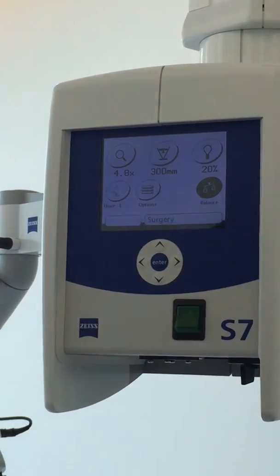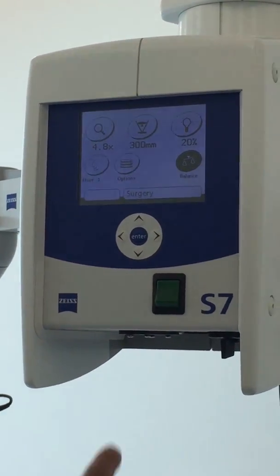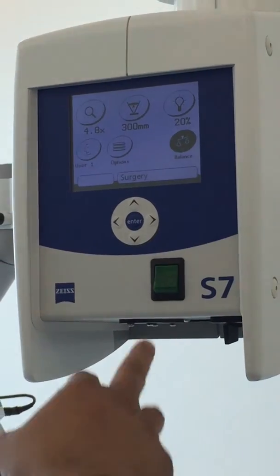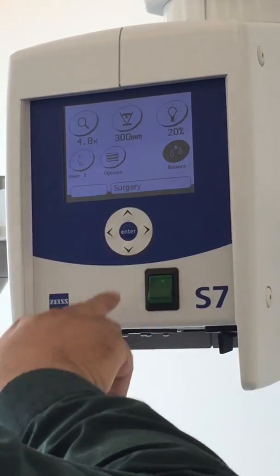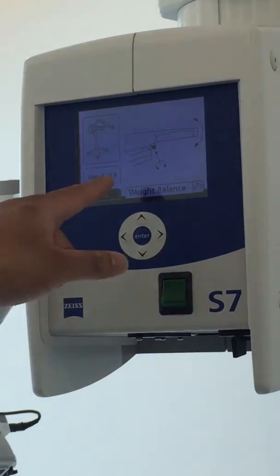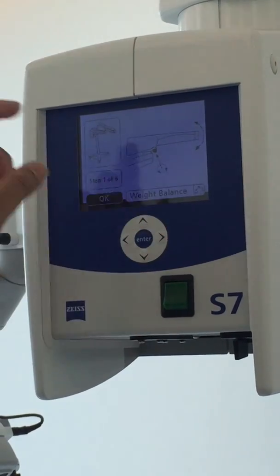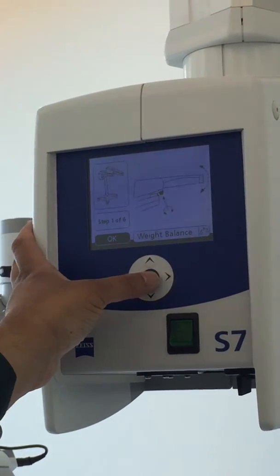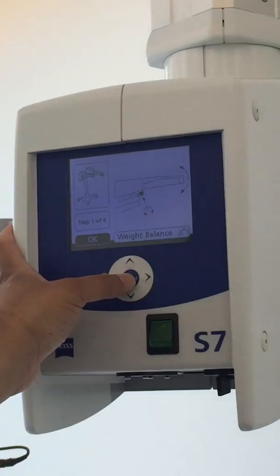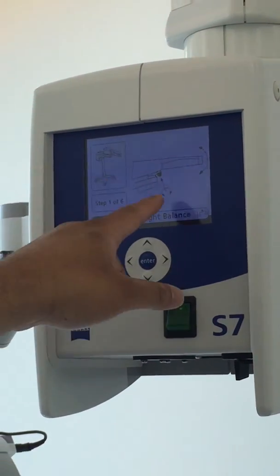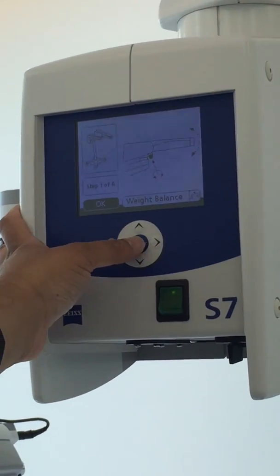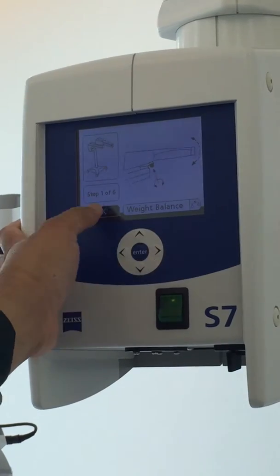And out here the same steps which are explained to you how to balance the microscope. If you forget you can come here to balance, enter and it's given step by step. So you need not remember things by heart. If you forget you can come here and all the instructions are here. Step one to three.